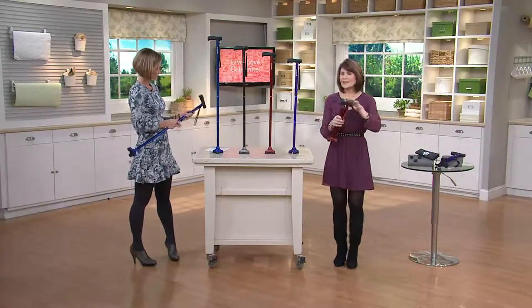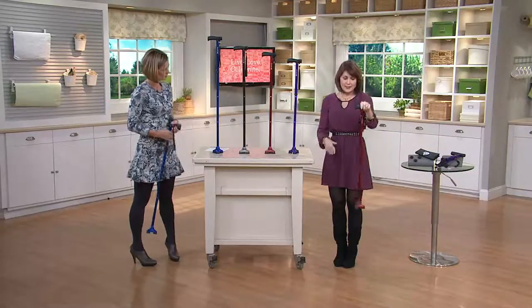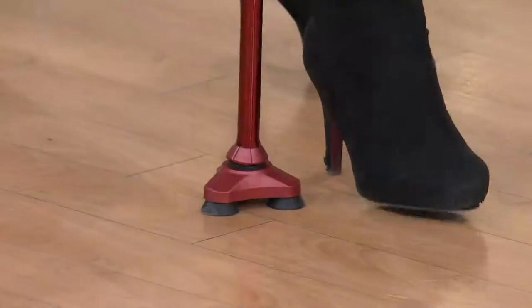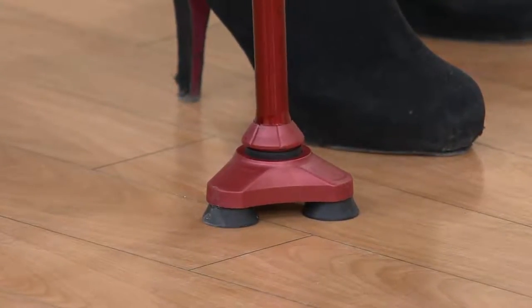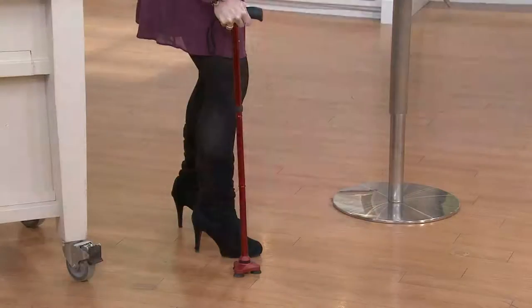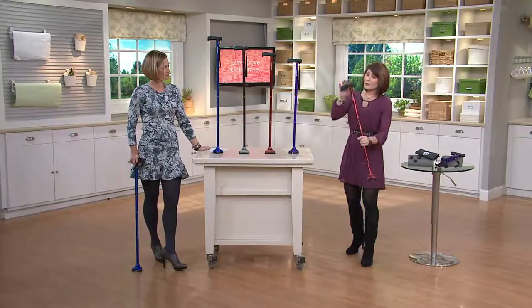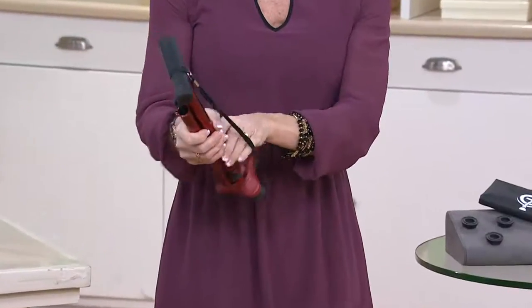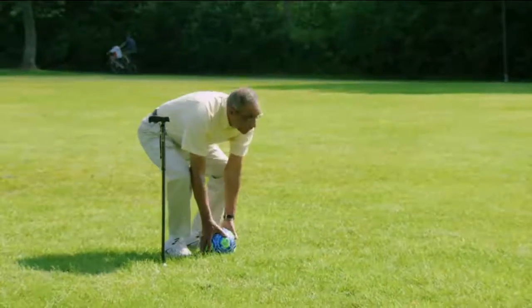Again, the people at Hurricane studied physiology, the science of the human body, and physics. When they designed this cane, they designed it specifically to work and mimic the body, so it's going to aid and assist you. You've got those three prongs at the bottom — three points of focus — and this is a very subtle and specific movement. You do not want the base to have a great range of motion; this is supporting you. It's going to take the impact out of your wrist, elbow, and shoulder. We gave you three extra feet, like the tires on a car. When you fold it up, you can set it right on your lap, wrap the strap around it, set it next to you, set it in your purse — just a really easy, guaranteed way to have support when you need it.